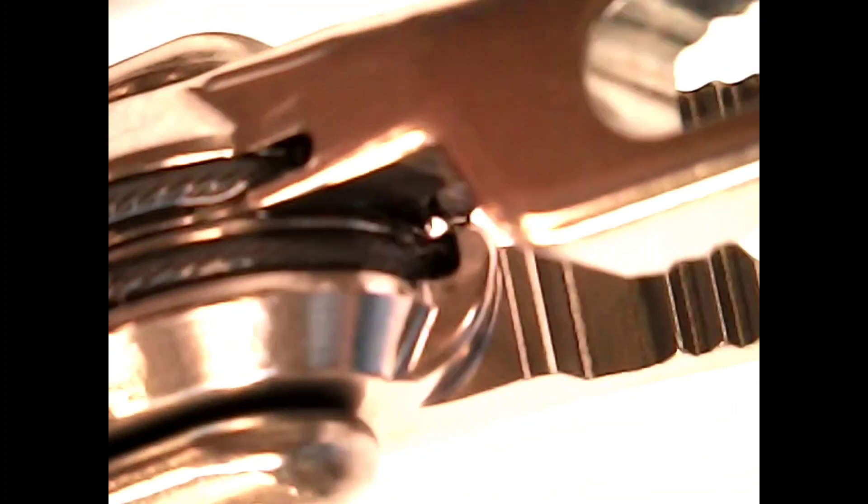I want to take a look at the pulley system. As I am right now, I'm looking at that jaw again, looking at that pulley system, making sure that there's no adhesive, no blood, no frays, no cracks, no chips, that there's no damage to it whatsoever. Looking at the pins and the screws that hold the jaw together.